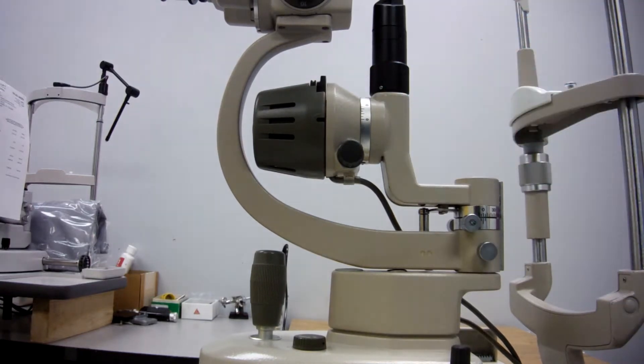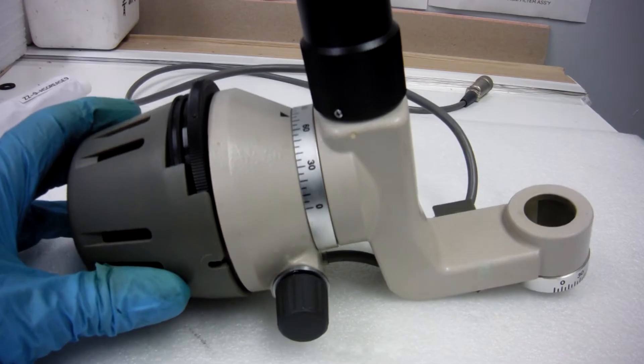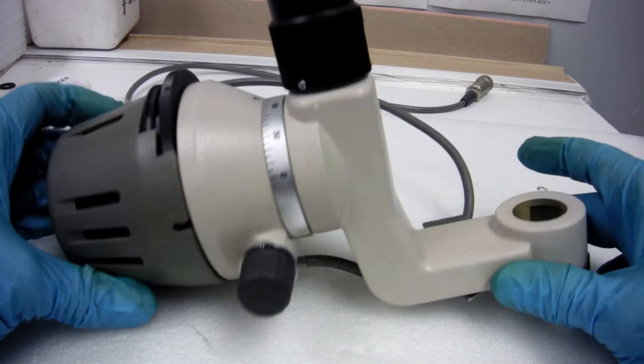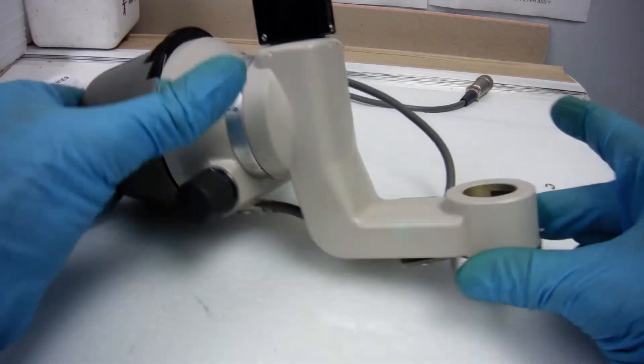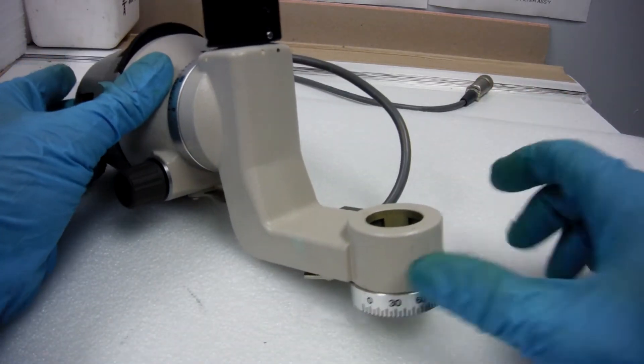We're going to take these apart and clean them and re-lube them. I've taken off the slit lamp from the unit here.